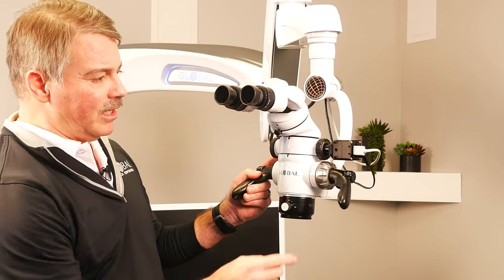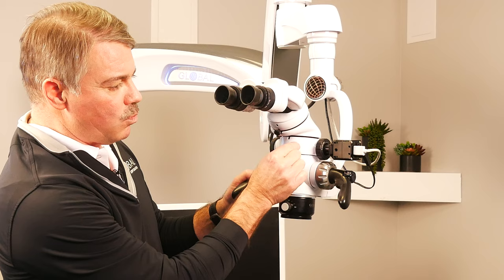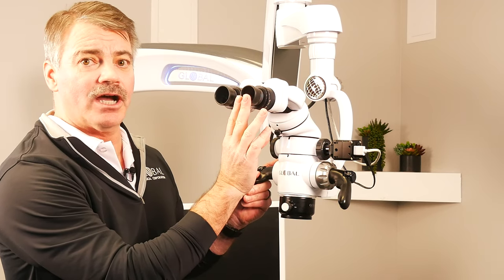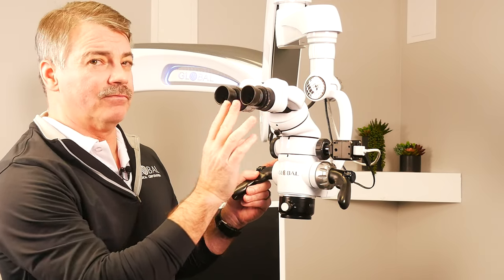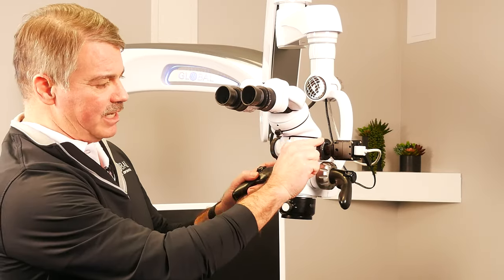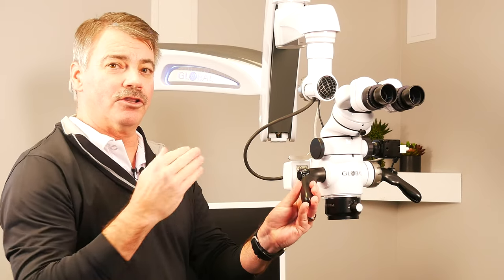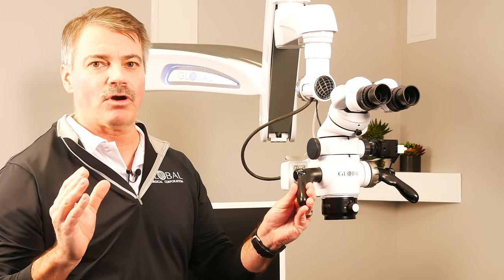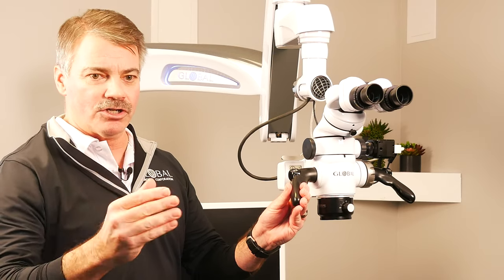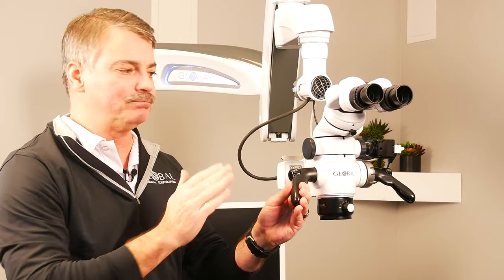Keep in mind, if the camera system is on the right-hand side, since it's only seeing one path of light, the image will only show what the operator's right eye sees. If your operator happens to be left eye dominant, you'd want to take this off and mount it on the other side. Otherwise, the image is not going to frame properly on the screen when capturing videos, because their dominant eye will pull the image to that side of the system.